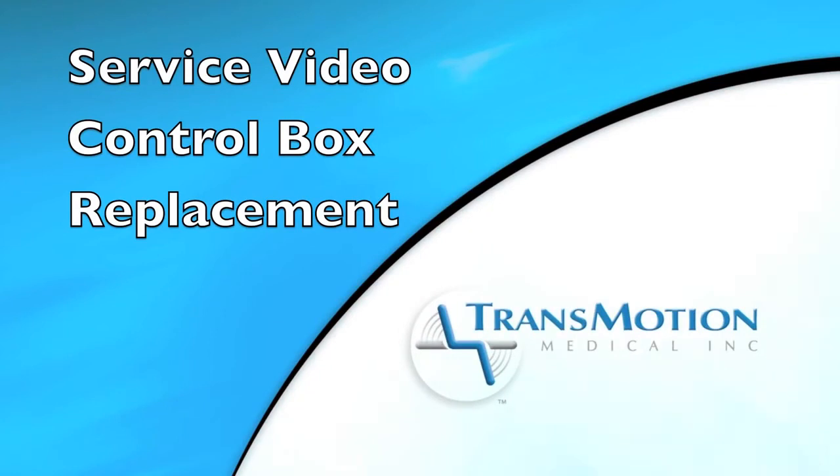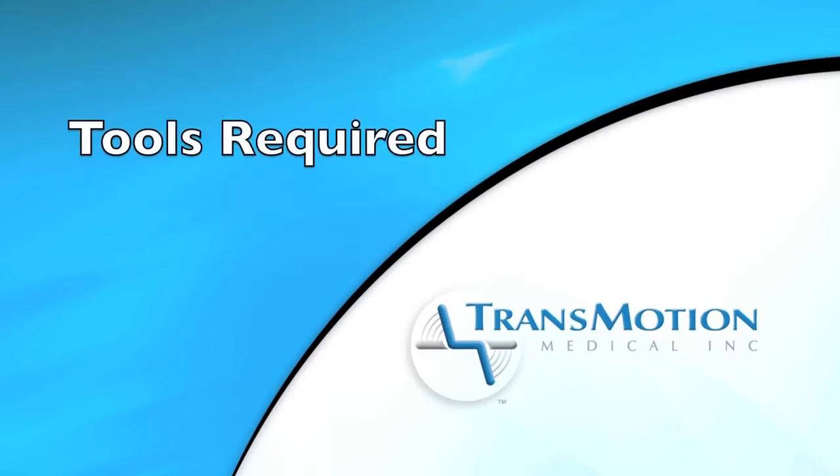The following video provides instruction on how to properly replace a control box on a TransMotion Medical stretcher chair. You will need the following tools for this replacement.